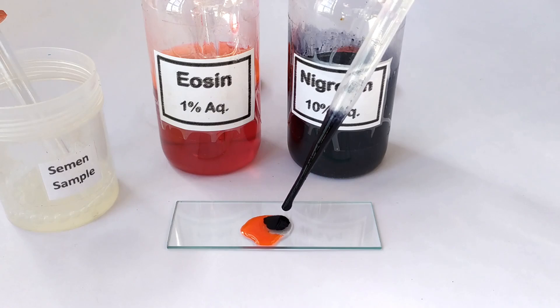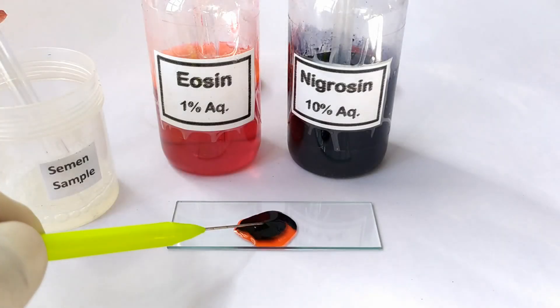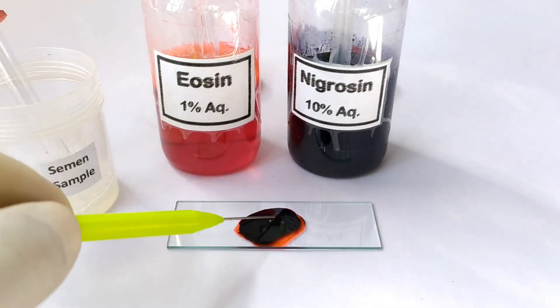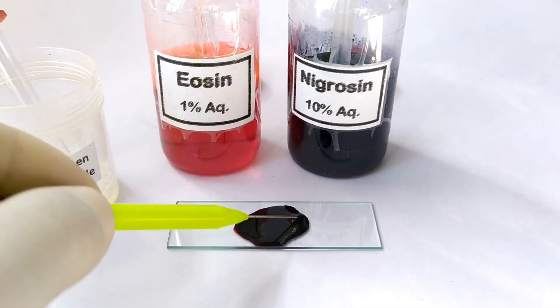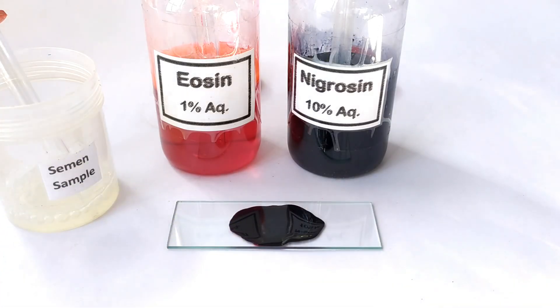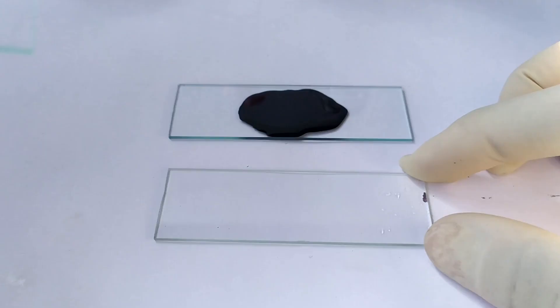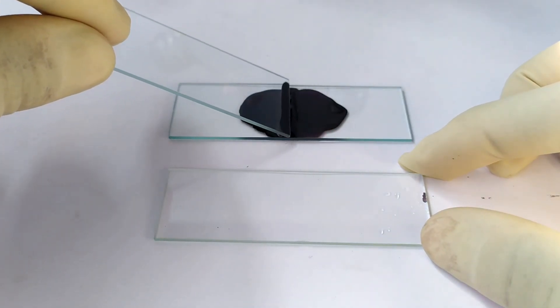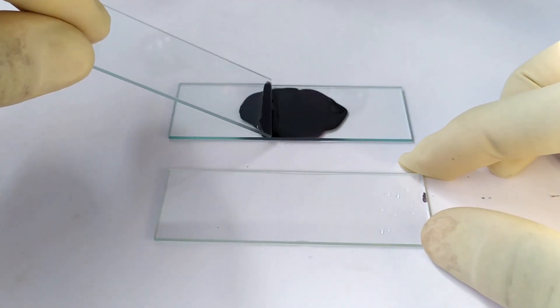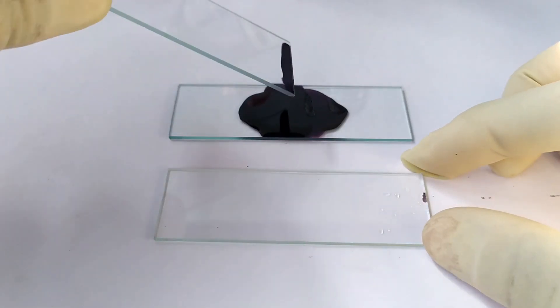The stain and the sample are gently mixed on the slide and allowed to stand for 10-20 seconds. Take a second slide, touch one edge of this slide on the sample, and prepare a smear of the sample onto a third slide.